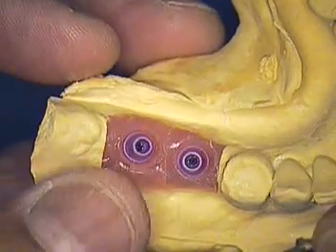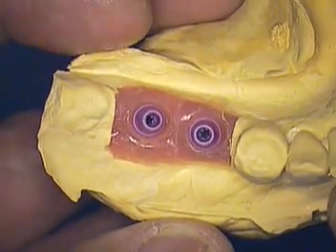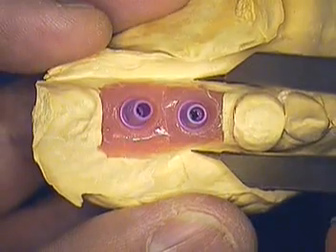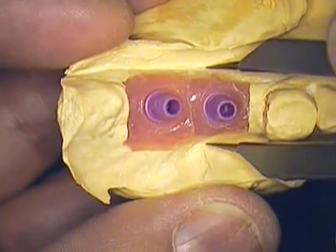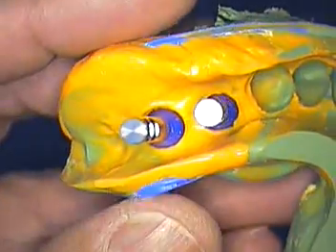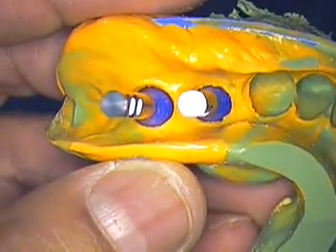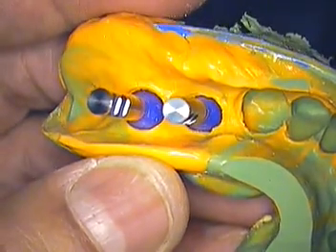I'm just trying to simplify things and give you an idea of where we are with bone level cases. Get involved with your surgeon — maybe sometimes it's better for you to take the bull by the horns and impress upon the need for surgical stents. If you look at the bone, the width of the bone of this mandible — I mean, that is huge. I don't see anything knife edge or undercut in this particular case. And if you look at the impression, you can see the arch has lots of room to the lingual on both sides.